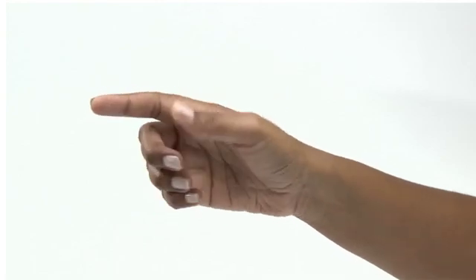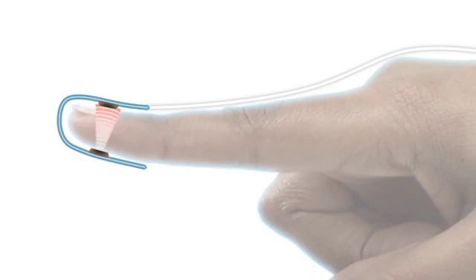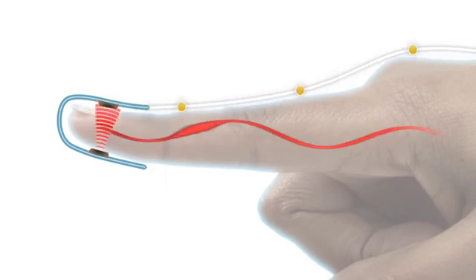Each sensor has an emitter that projects a tuned light wave pattern through the arterial blood flowing in the finger and a detector which receives that light. The heartbeat creates a signal detectable throughout the arteries. This signal is detected by the light waves and used for measuring both pulse rate and oxygen saturation in the arterial blood.